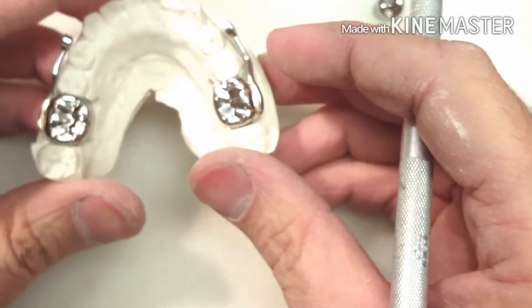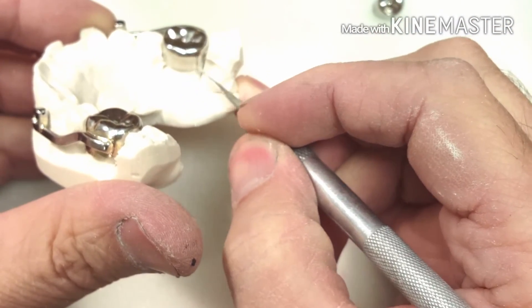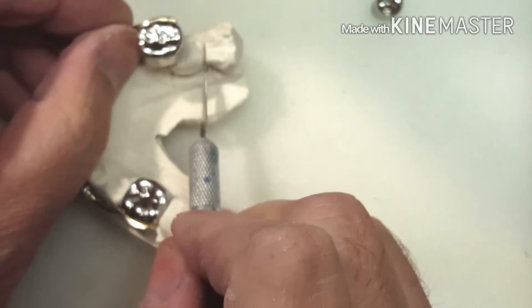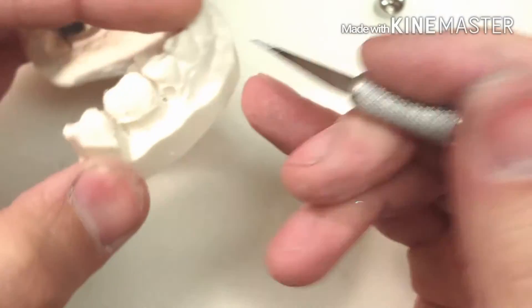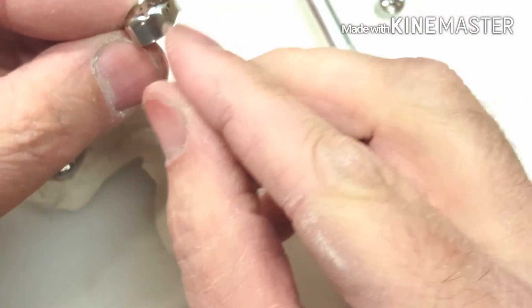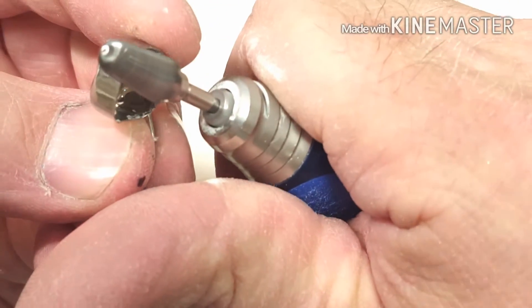For the lower, I'm going to put the same circle here. But here's the other impingement part on the lower — you want to take off some of the crown length, and there's also a catch. This part right here on the distal part of the tooth: when the patient goes to use this area on the distal of the crown, it pinches. That's where the patient complains, right in here. So I'm going to not only remove a little bit of the curvature and length of the crown, I'm going to take away that pinch and make this a little bit shorter.